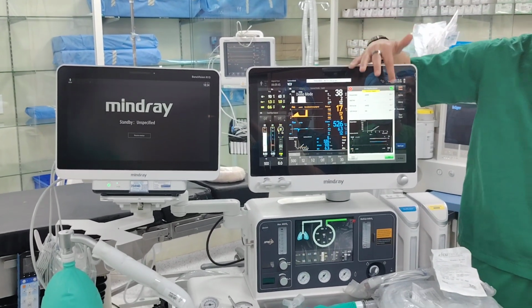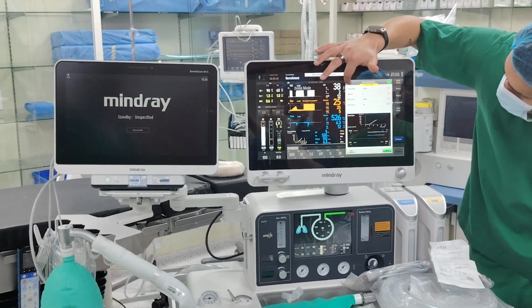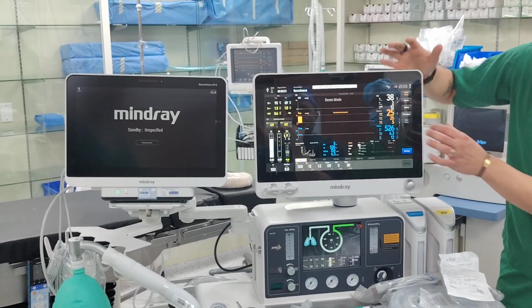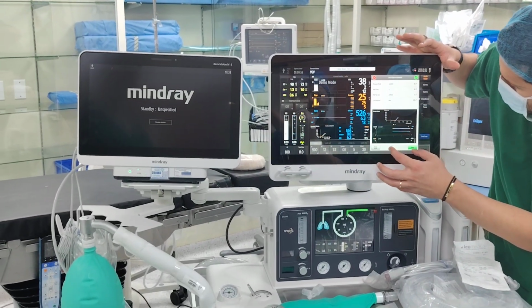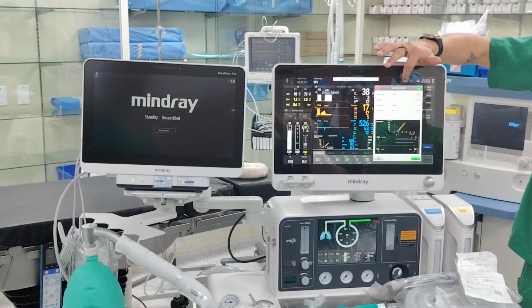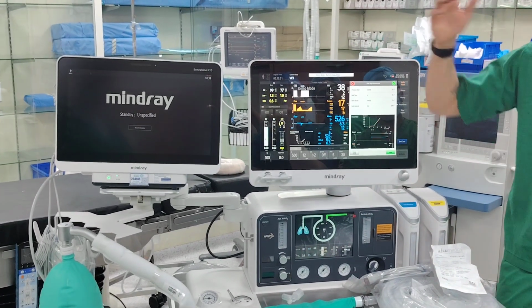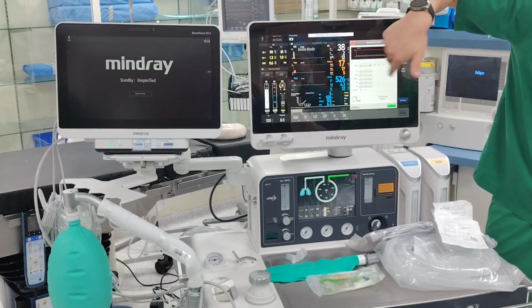Once it finishes, what happens? It will turn back. Okay? You want to stop it? You press this, it will stop it automatically. You will press, where is it? The red one. Yeah, actually I stopped it. When I pressed the red one, it stopped, in case they say, enough, good to go. Yes. All right? And multi-step, you can control everything.